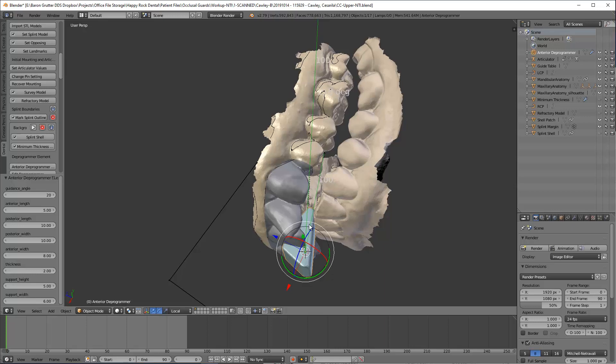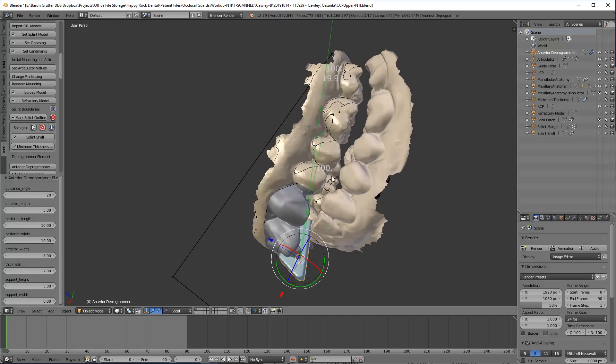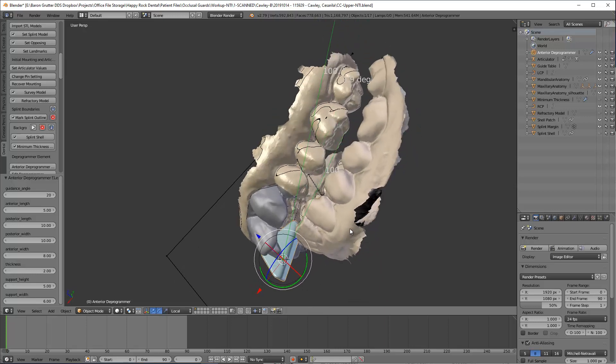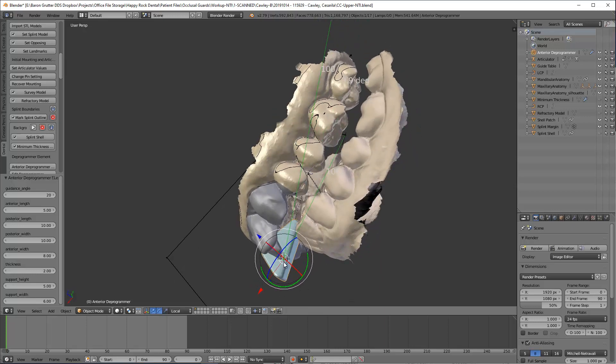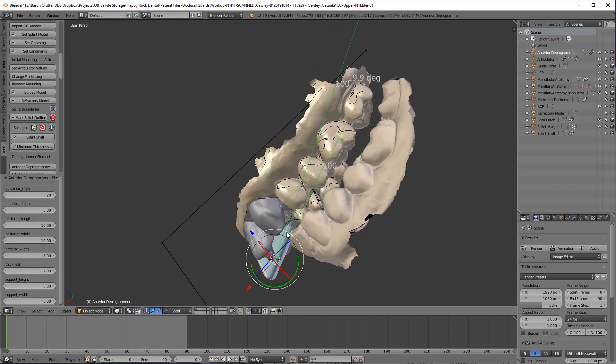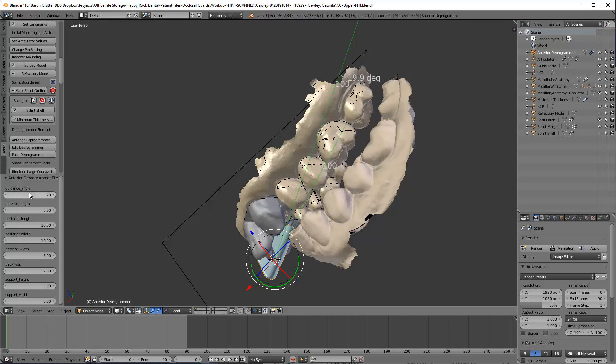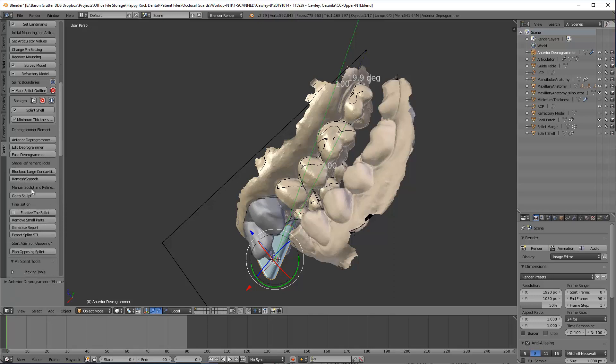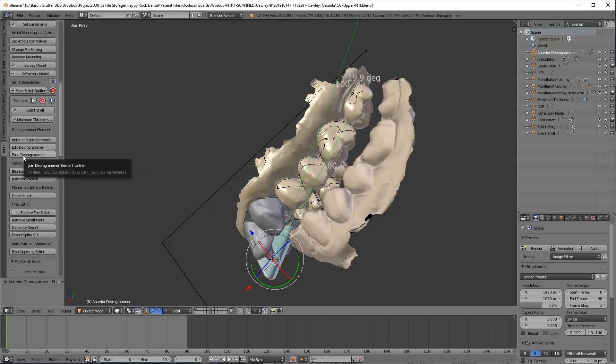And that's it. So really just have to change the angle. But since you've got such a deep bite, I had to. It's usually I have to reduce the thickness a little bit, increase that height, and then possibly change the posterior length and the anterior length, just depending. But I think I'm pretty good here. So now I can come over here and I can minimize this again, and you don't have to click on this. I'm just trying to make it easier for you to see what I'm doing. I click on edit if I want to change things again. Now I just hit fuse deprogrammer.